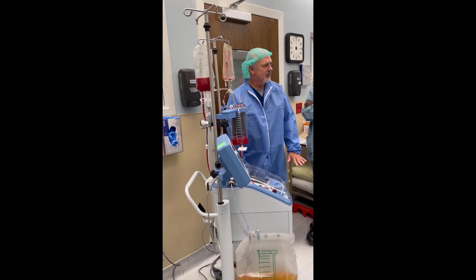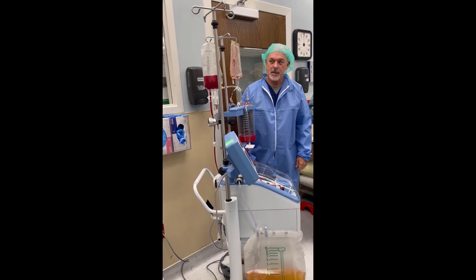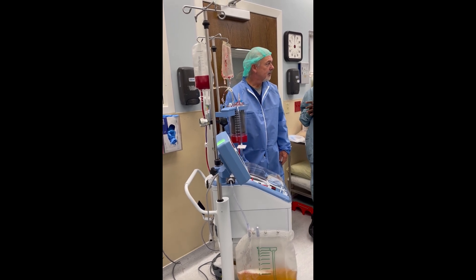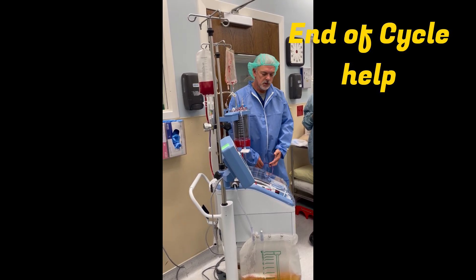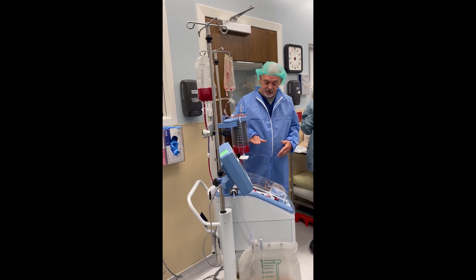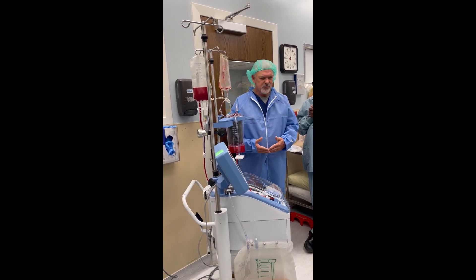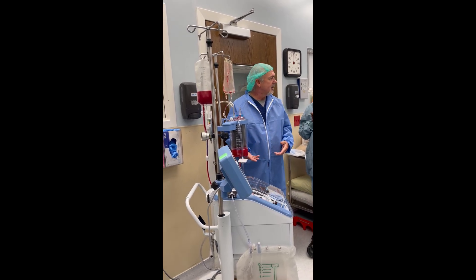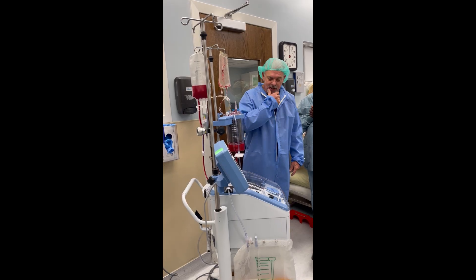Better understanding of this thing? Sometimes it's about 200 or 300 in the automatic that starts washing — that's a setting they've done that I don't always see. It's basically about 600 or 800 before it starts. It's actually set at 800. But remember, it's a weight sensor. So oftentimes we look at it as a volume thing, but it's really weight. 300 is a little early, but you could have 500 or 600 in there and it can trip if the crit is healthy. If it's really dilute, sometimes it takes longer than the 800 that's built in, and they can create a custom setting.